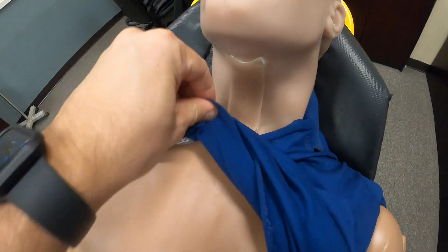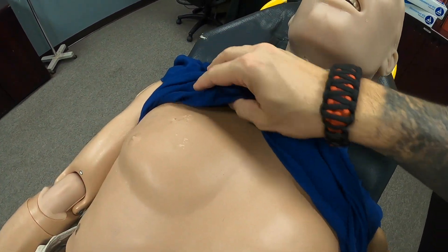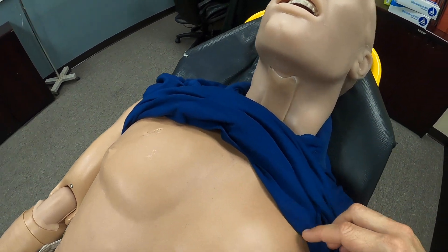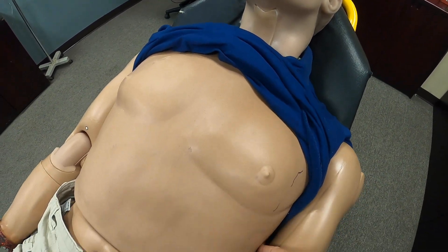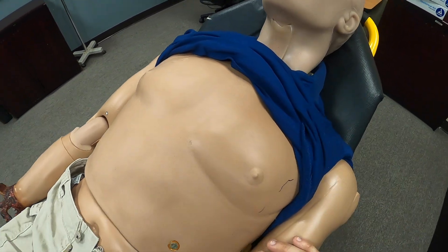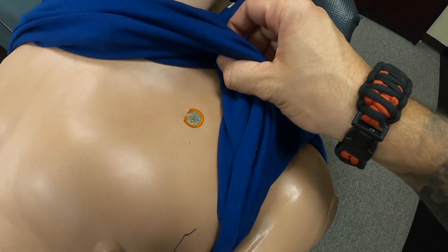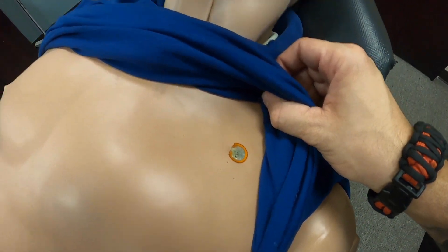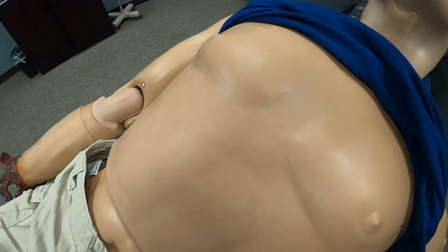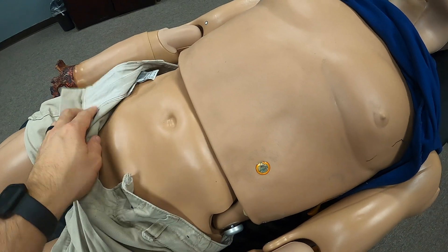Going to the chest cavity, it has bilateral working lungs with appropriate lung sounds. It can also be needle decompressed on both sides at both points — the mannequin will actually give us recognition when the student is in the proper place. EKG pads can be placed on a four-lead monitor, and it has bowel and abdominal sounds as well.